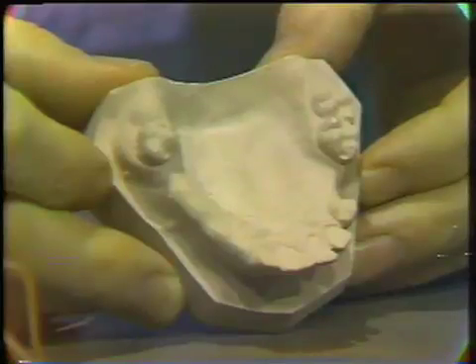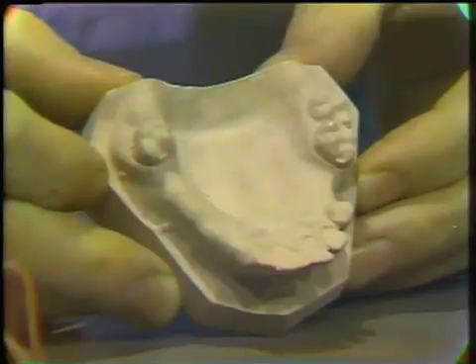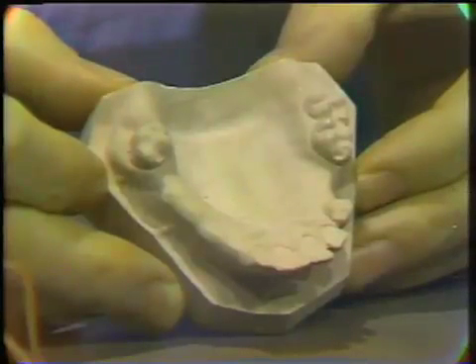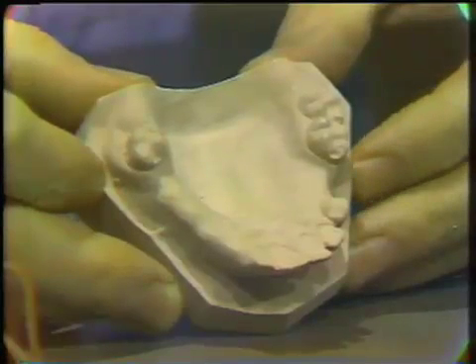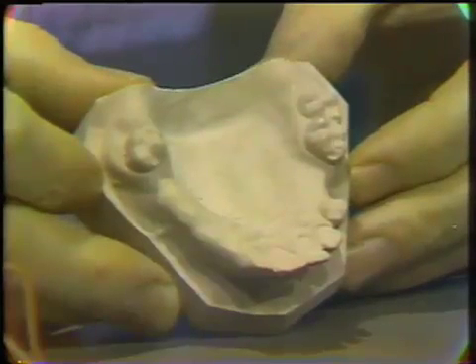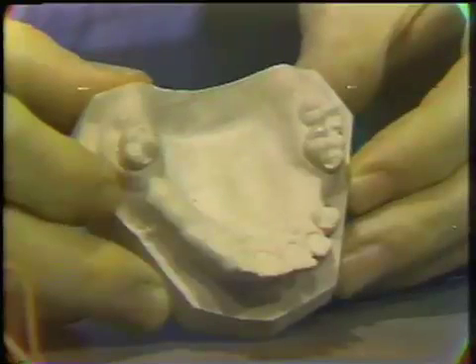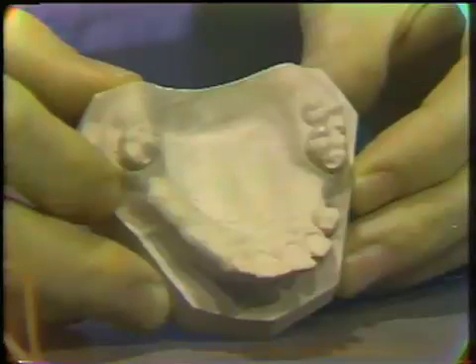The principal differences between these three products — model plaster, dental stone, and improved dental stone — is principally in the amount of water that can be used to make a mix. To mix model plaster, you must use something in the order of 50 to 55 milliliters of water per 100 grams of powder. For dental stone, you can mix 100 grams with as little as 30 milliliters of water. With improved dental stone, you can use as low as 22 to 24 milliliters of water per 100 grams of powder.